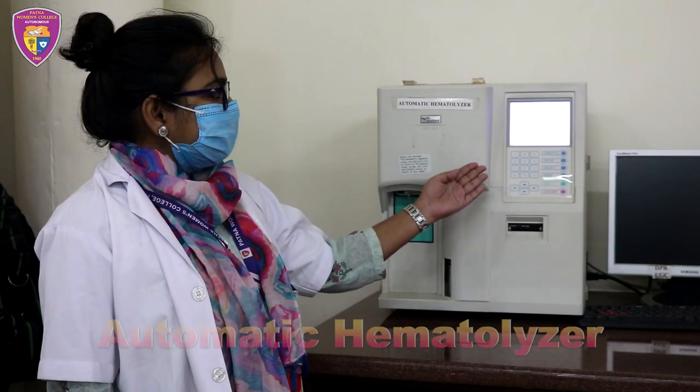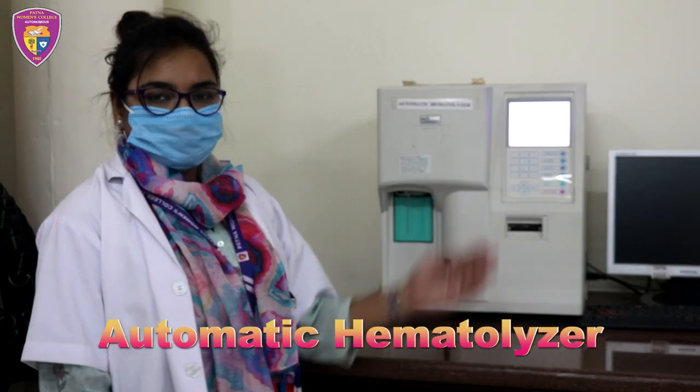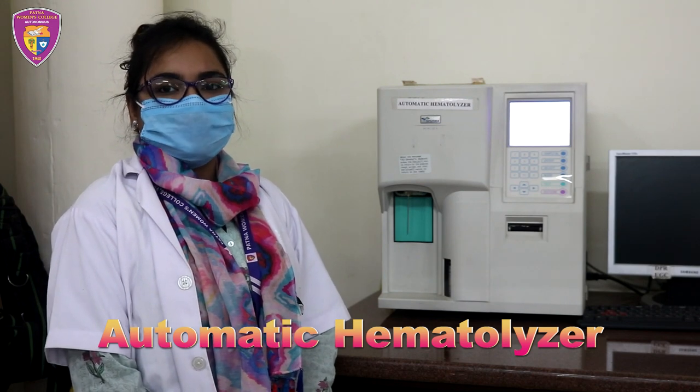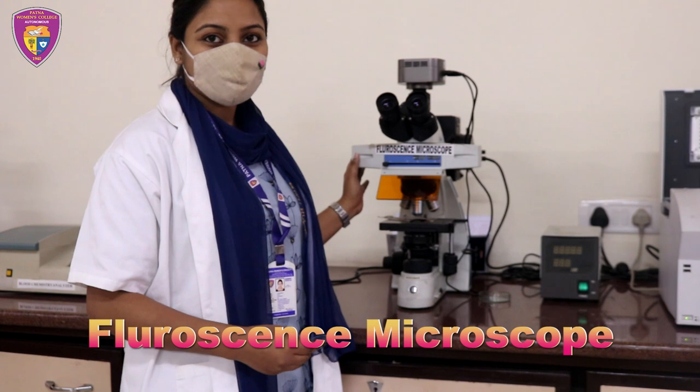This equipment is a hematoanalyzer and it is used for complete blood count, which includes RBC count, WBC count, hemoglobin level, hematocrit level and platelets. This is a fluorescence microscope.